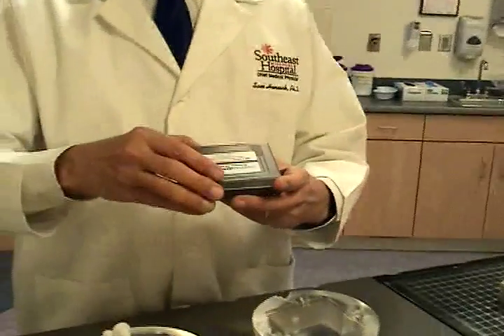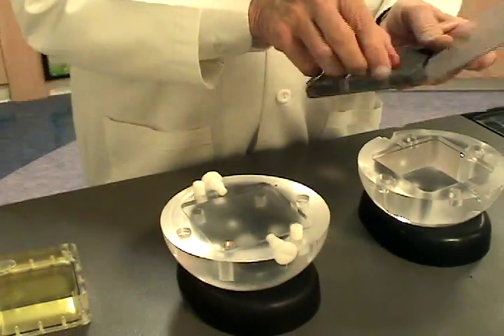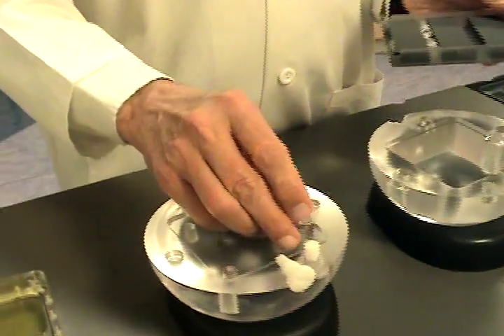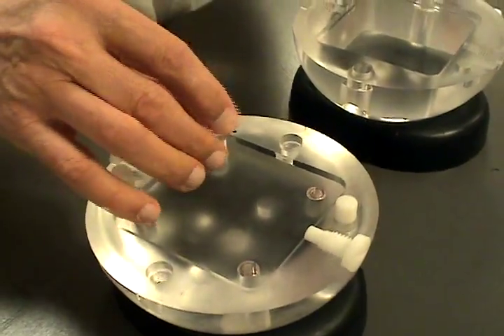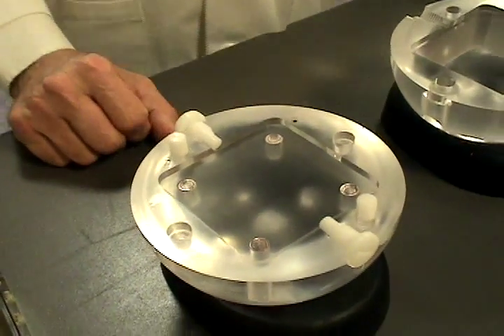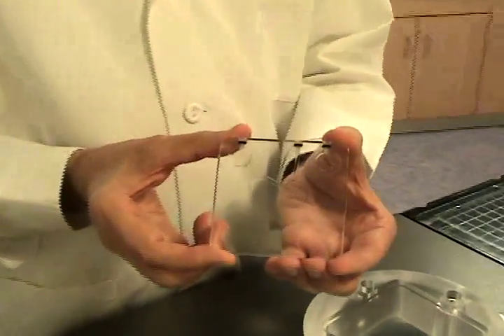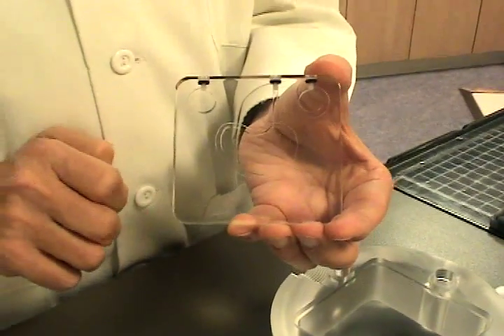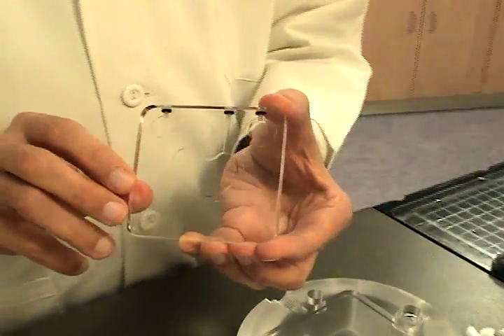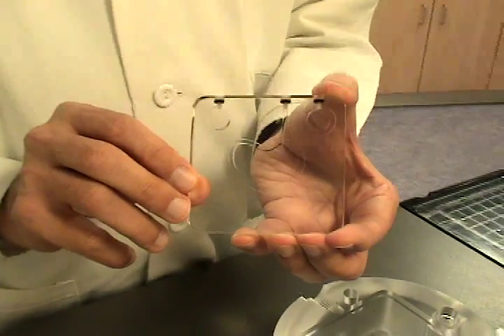To assemble the phantom for an MRI scan, you want your four MRI marker cylinders, which go in these four holes. These each have five mineral oil beads that match the location of five metal beads that go in similar CT marker cylinders. You also need an isocentric volume insert that looks like this. This has three mineral oil volumes that allow for accurate image fusion with your CT scan. This is called the MRI isocentric volume insert, but I also use it for CT scans.